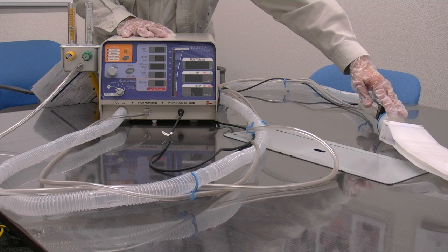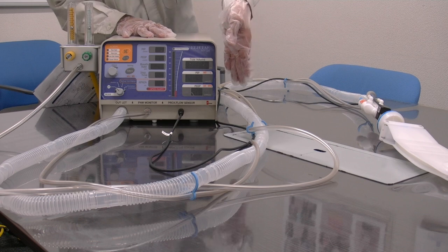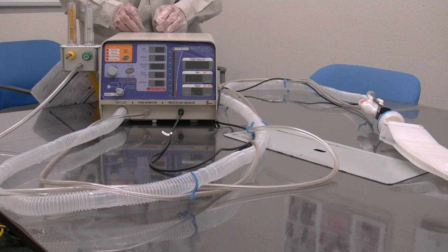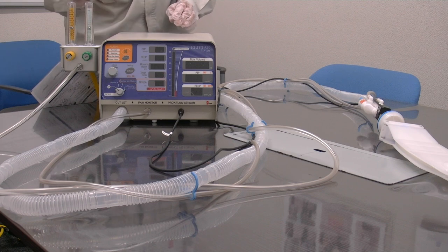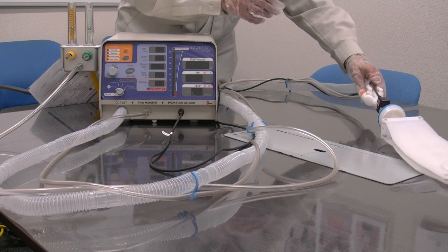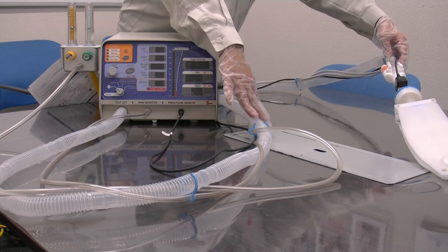As the patient breathes out, their exhaled gas goes down the breathing tube and pushes air out of the back of the ventilator. During this exhalation phase, the constant flow of blended air from the Jackson-Reese tube will push the exhaled air out from the patient circuit, replenishing the volume of air in the circuit ready for the next breath.